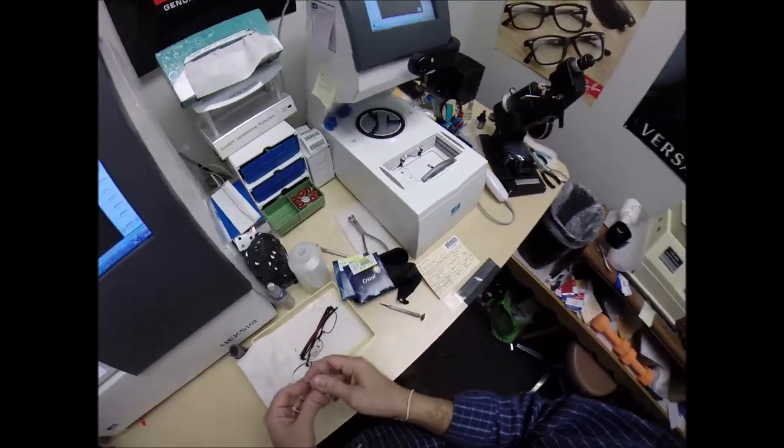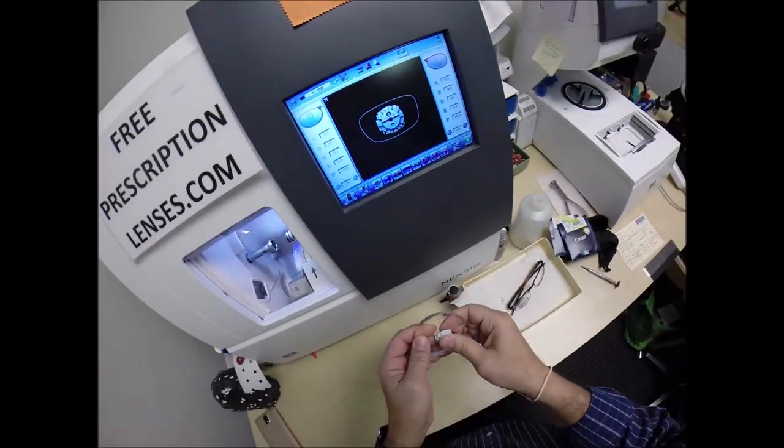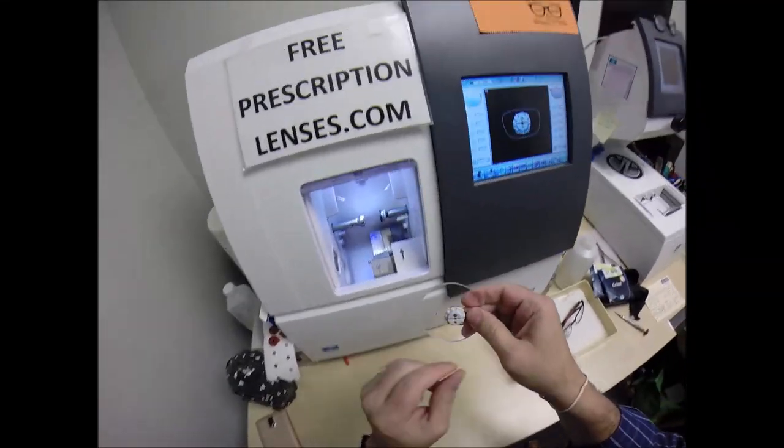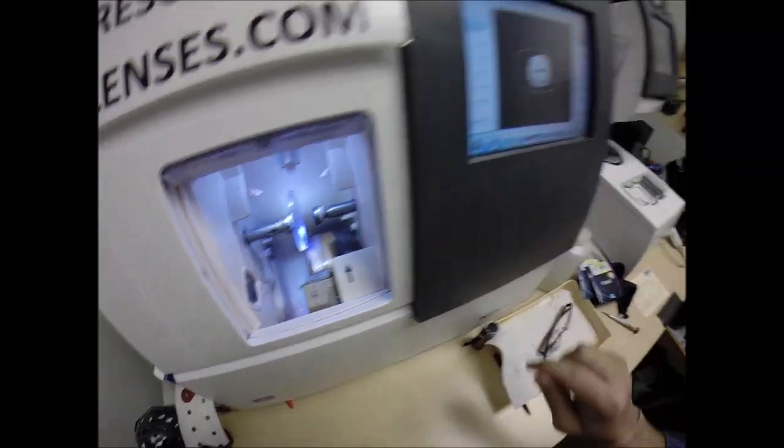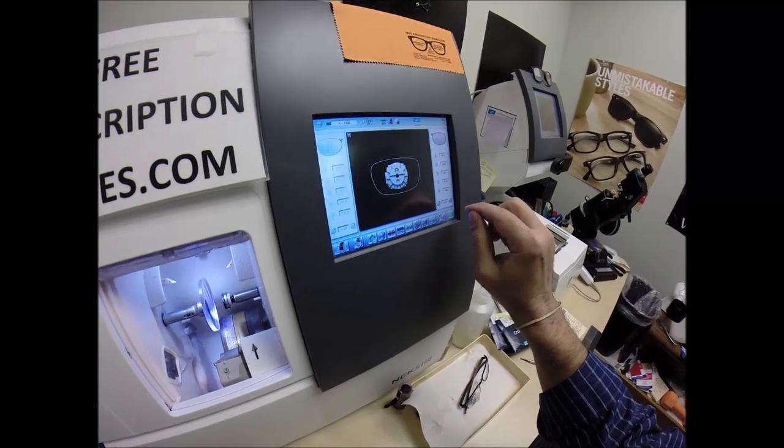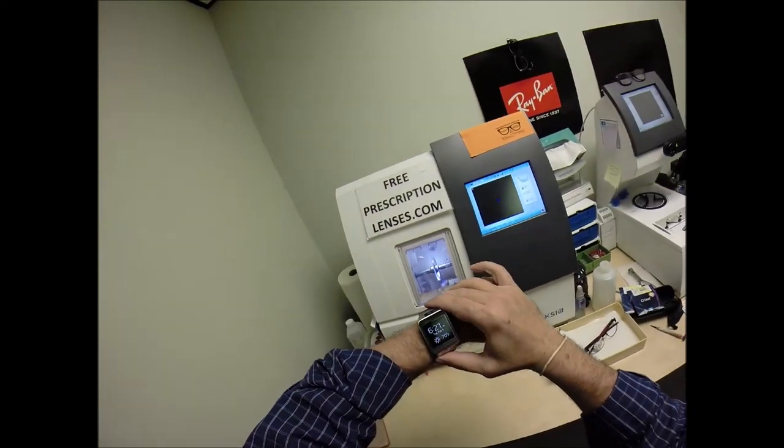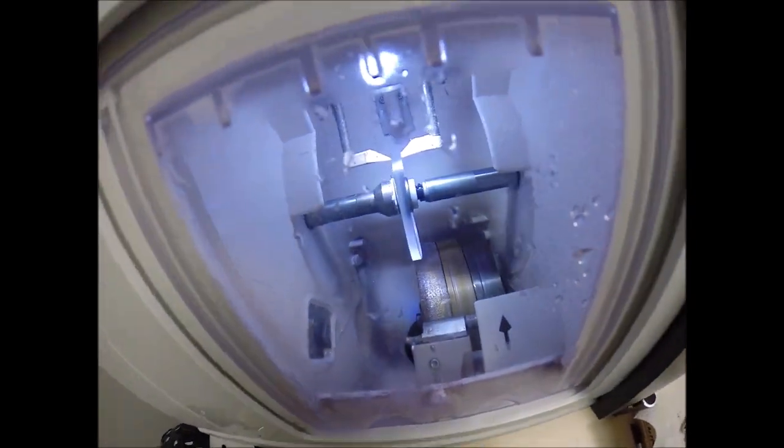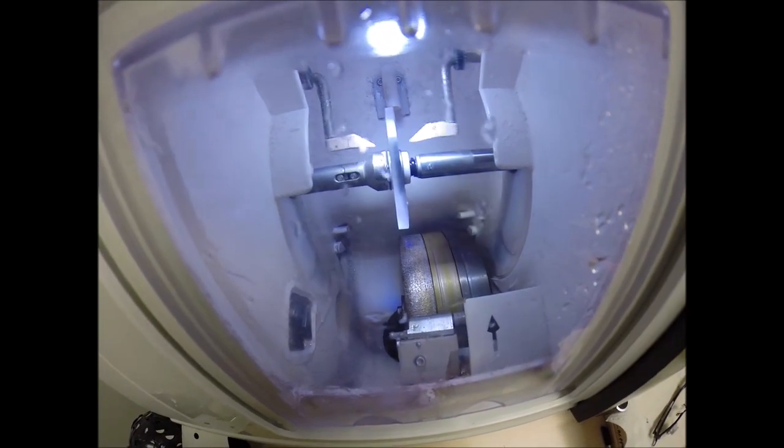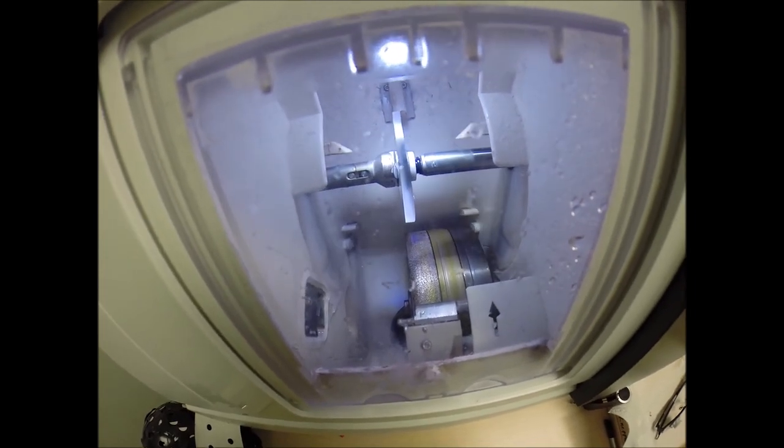So, let's go ahead and cut the left lens, which actually has a little bit more power. So, I'm going to flip that over to L, and I'm going to take that down one-twentieth of a millimeter, just so that is seated in there better. Press that on there firmly. Attach the magnet to another magnet there in the Chuck, the Charles, the Chucky baby. Oh, Chuckster, Chuckster. All right, that's enough. No singing. I'm not going to quit my day job or my night job because it's dark right now. It is 6:21 on Tuesday, February 5th. It looks 70 degrees in my hometown, early February. God, I've got to love North Carolina.